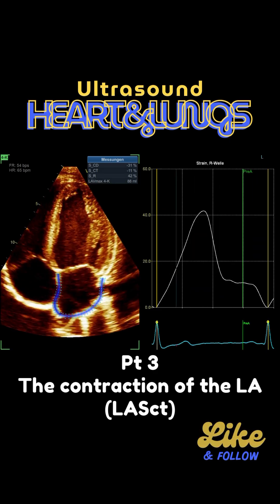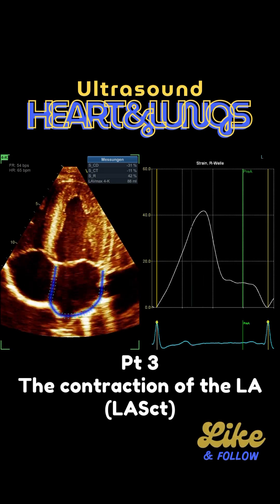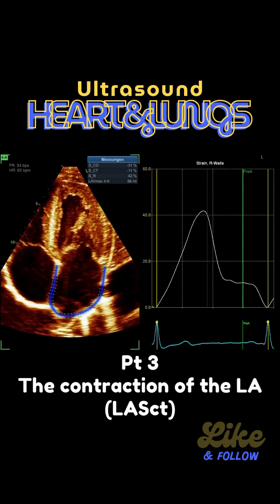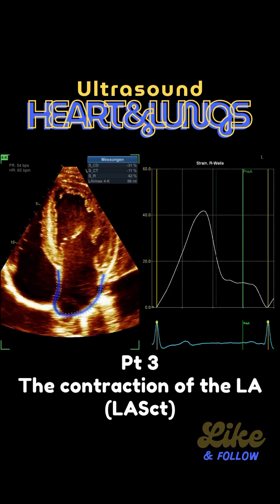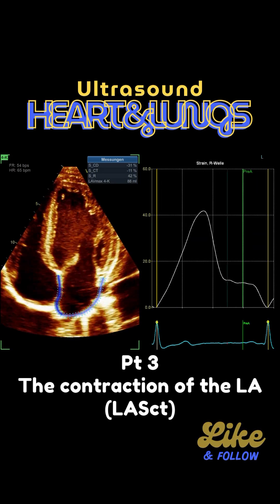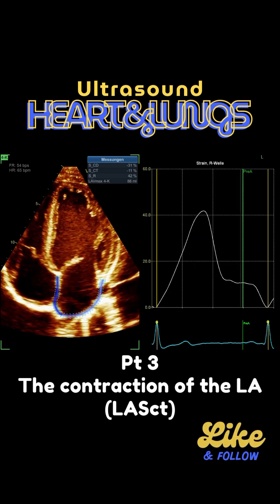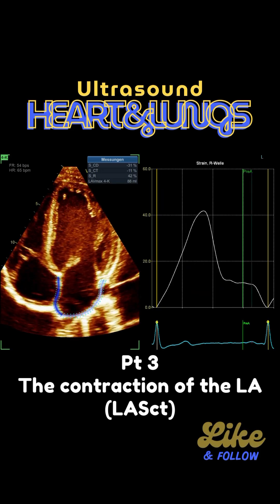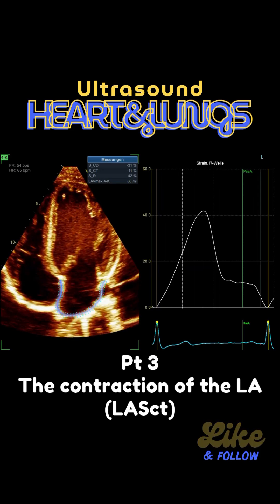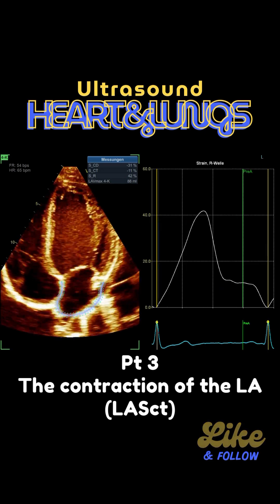I want to show you this specific loop because what's quite interesting is that this pre-A is not optimally placed. You have the waves again and you can see that the left atrial strain is rather normal. This was a very sporty individual, but also a steroid user. Nevertheless, strain imaging was still normal, and cardiac MRI was also normal.